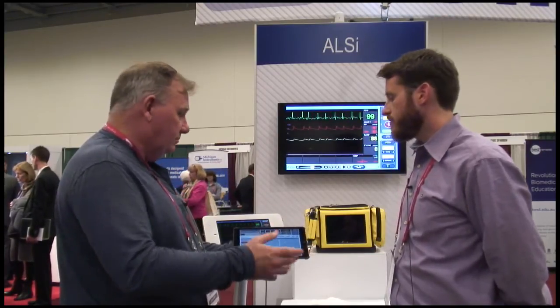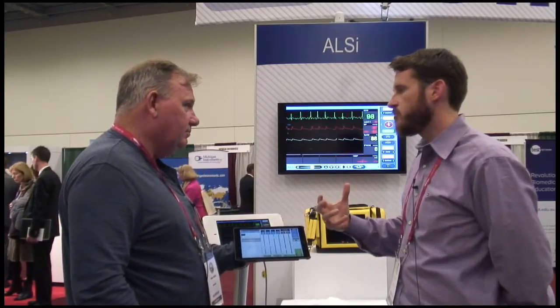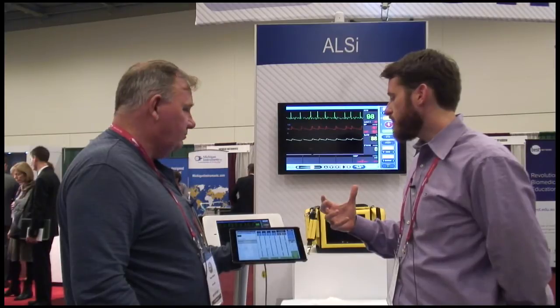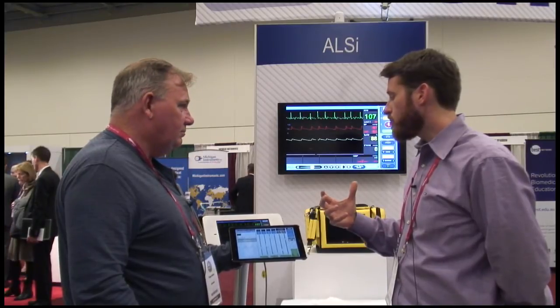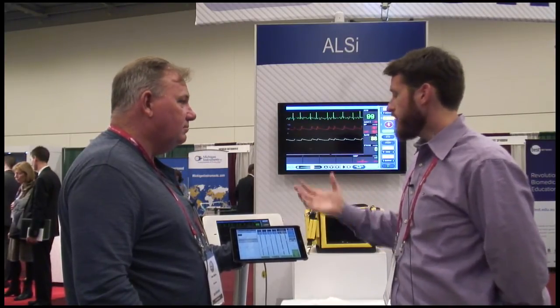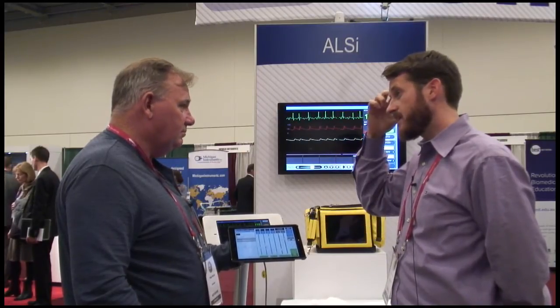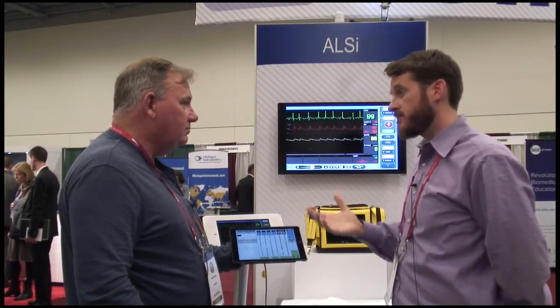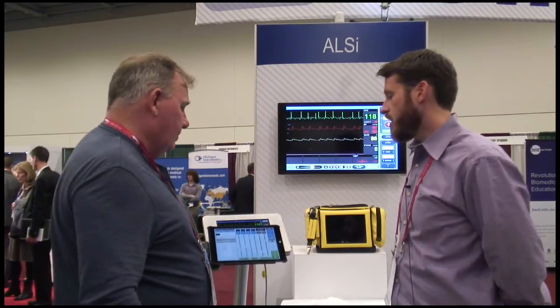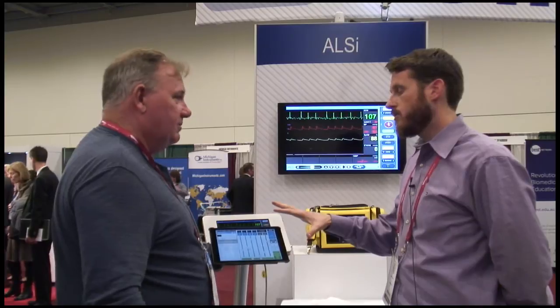We've taken ALSI and continue to improve and build upon it — evolving it to become the affordable way of providing patient monitors and a higher fidelity experience for low fidelity mannequins or standardized patients, and really taking everything to the next level. This is available now as an upgraded model.